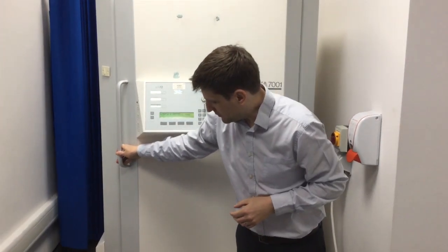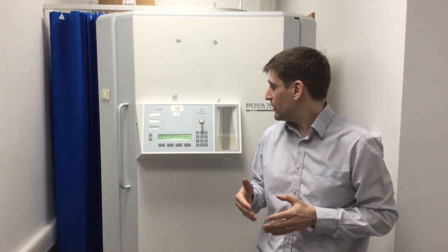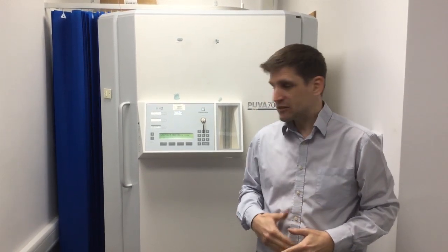It could also be that the cabin is run without the onboard sensors in time-only mode, in which case the purpose of the quality assurance is really about providing a factor that you can use to work out how long the treatments need to be, based on the irradiance measurement at the patient's skin.